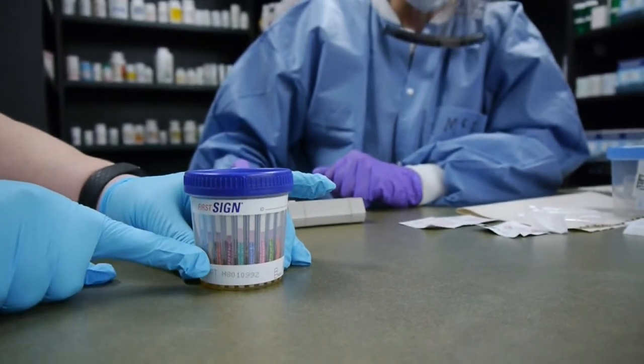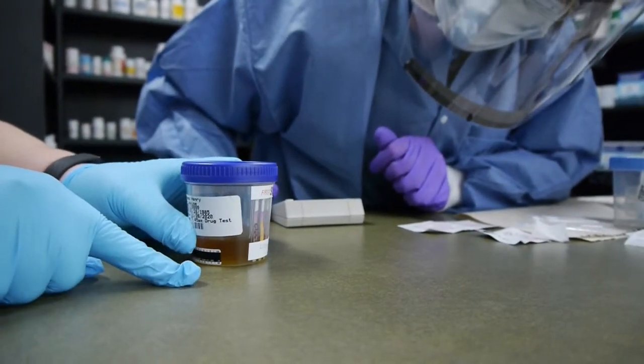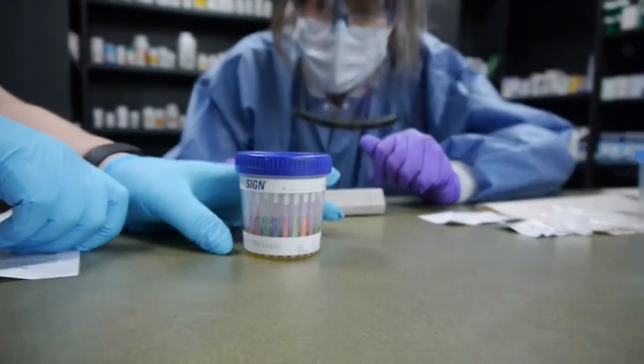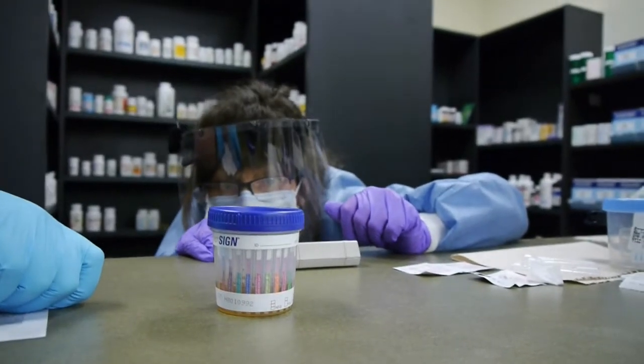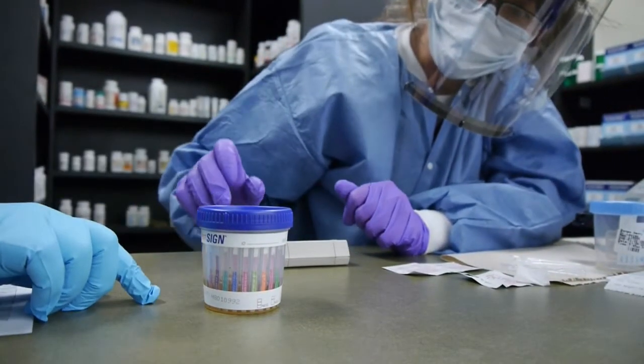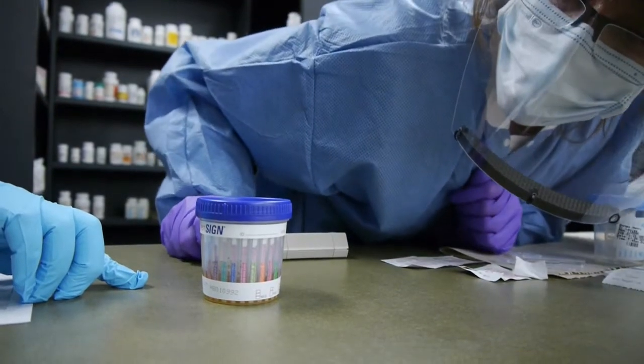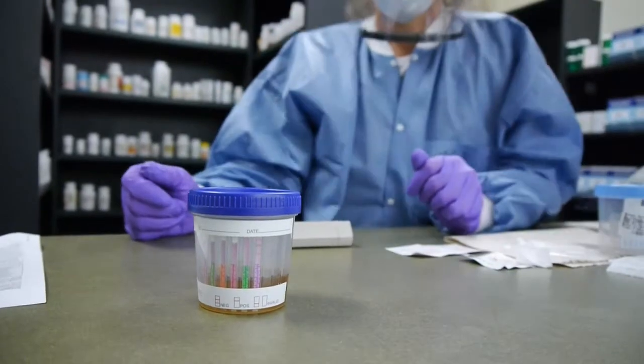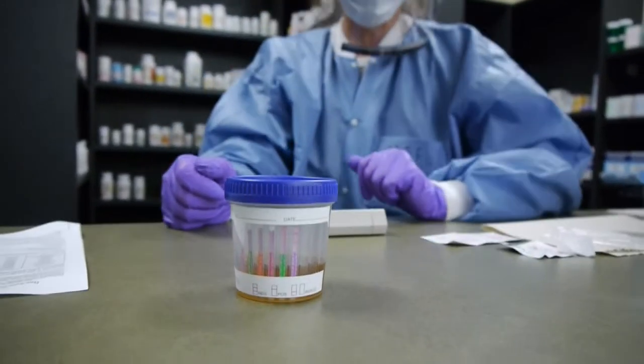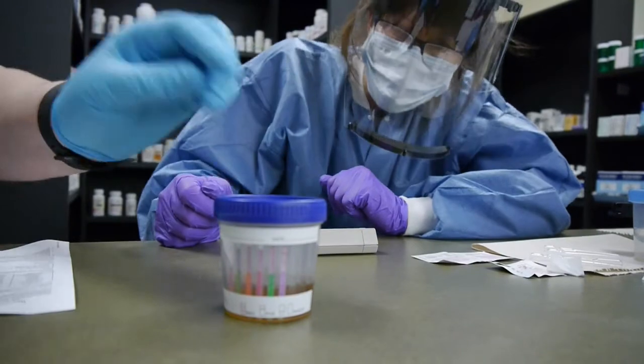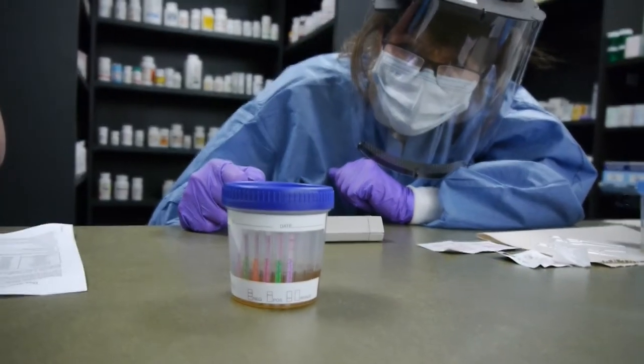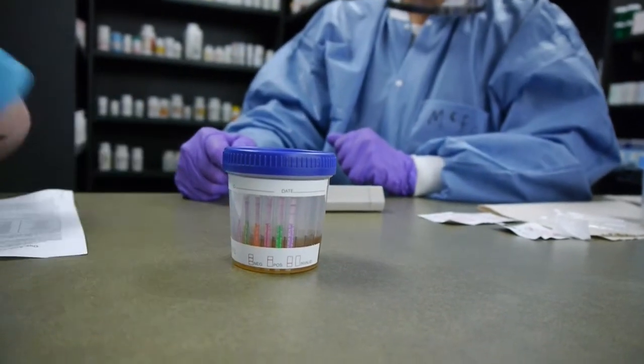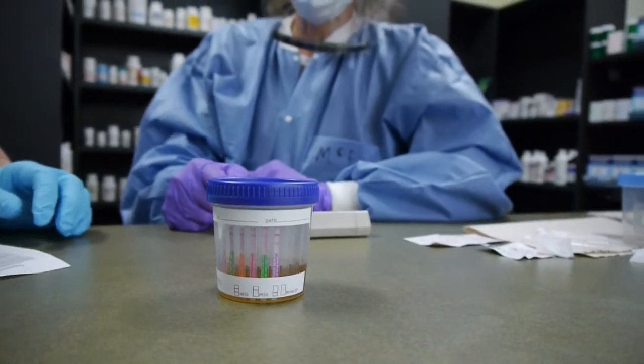In this case, a negative result will indicate that you'll see a control line and the test line. It's when we have an absence of a line that means positive for that particular strip, because each strip is a different drug.